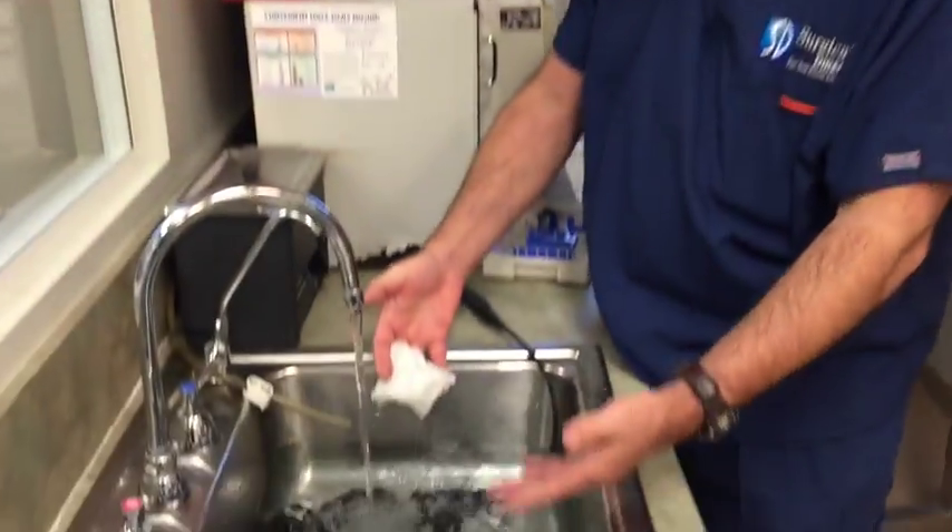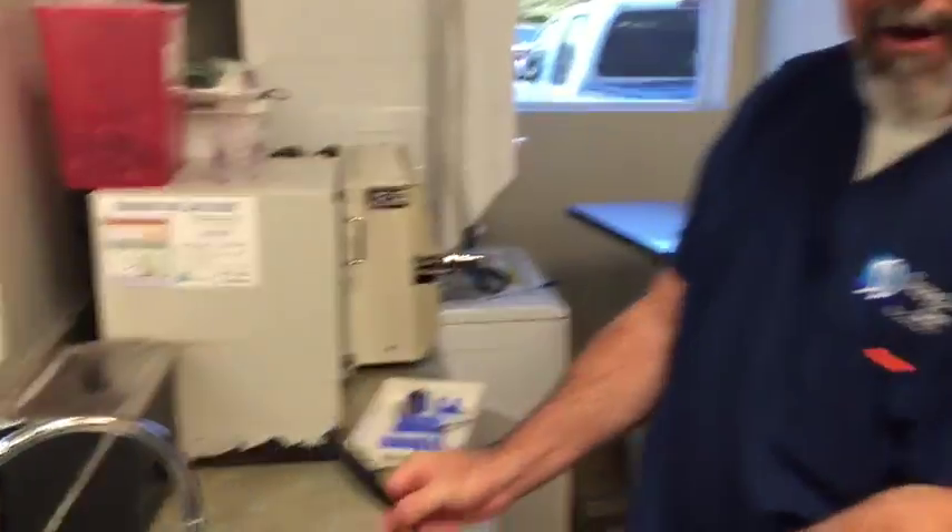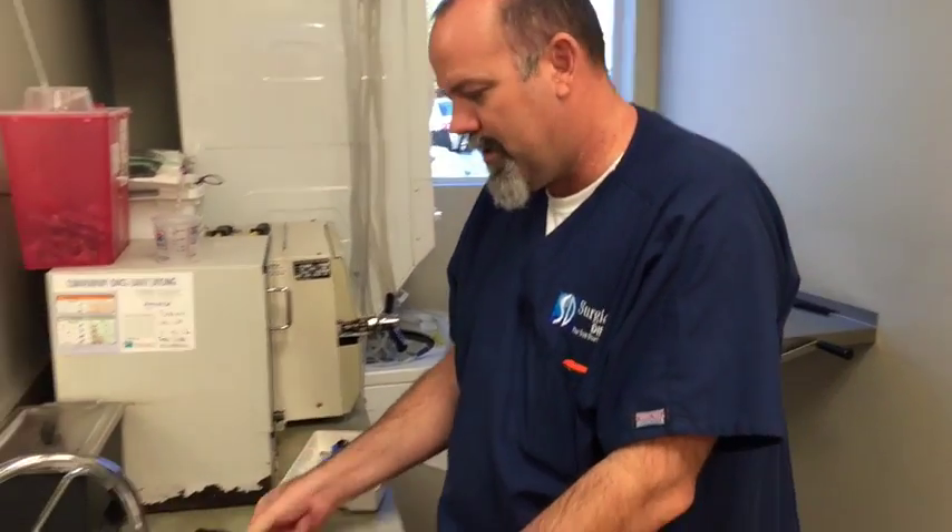As you can see, everything here is submerged. I did leave the shaver in and out — it could probably be submerged, but it makes me nervous, so I always do that.